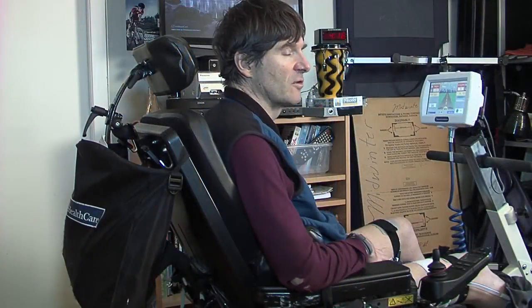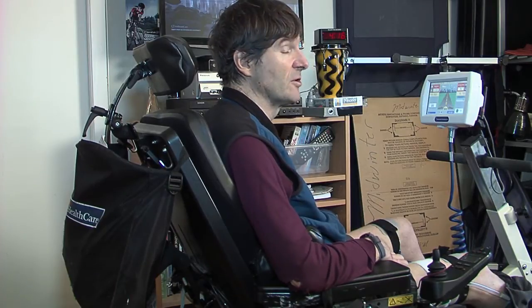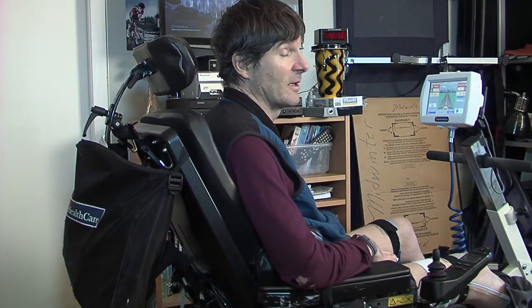My goals in using this machine are to help retain the muscular strength in my legs, which in turn is going to help me keep my physical health, maintain my body weight, and feel mentally better as well.